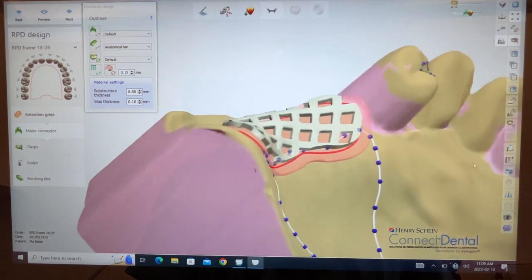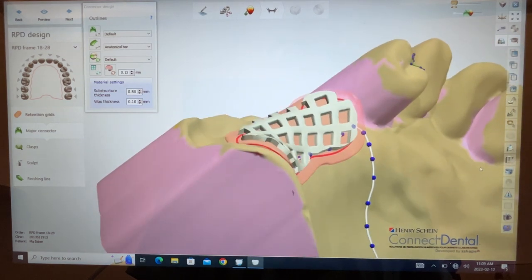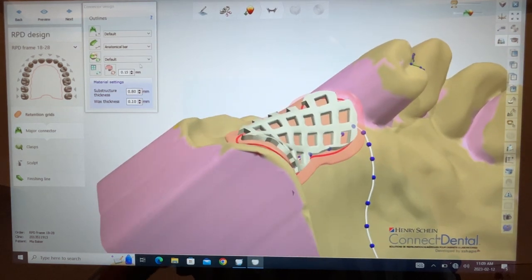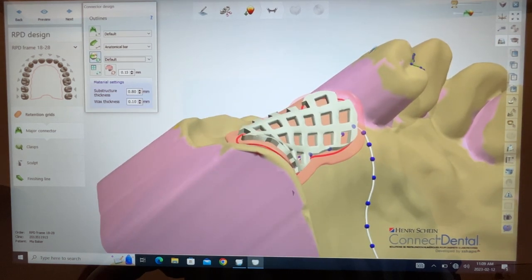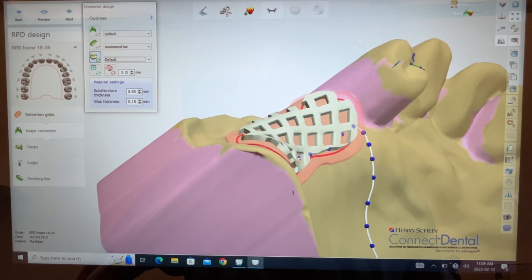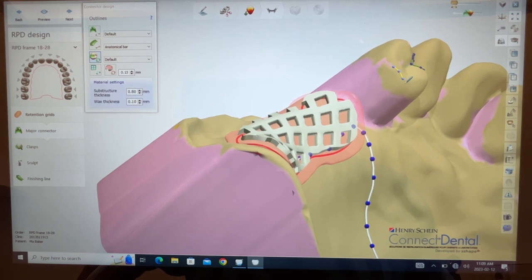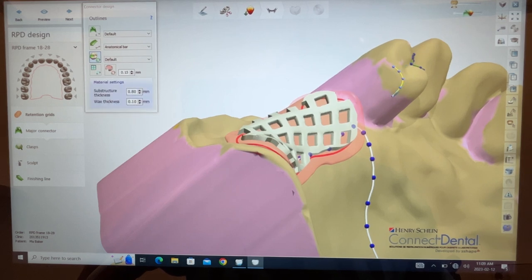Maybe I can do another rest here for the guide plane. Why don't we do that? Dip it into the rest icon. This is going to be a G-clasp but it's going to be right up here at the shoulder of the marginal ridge. Come down here. Let's attach it.